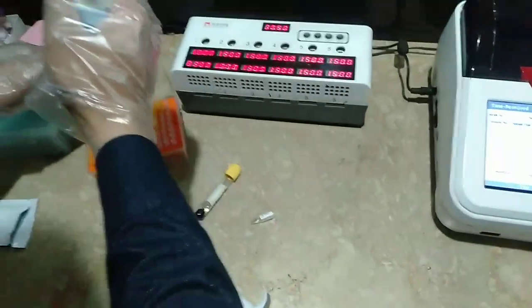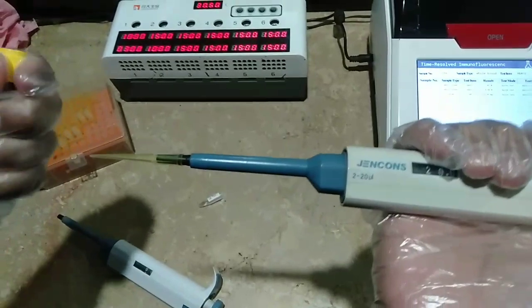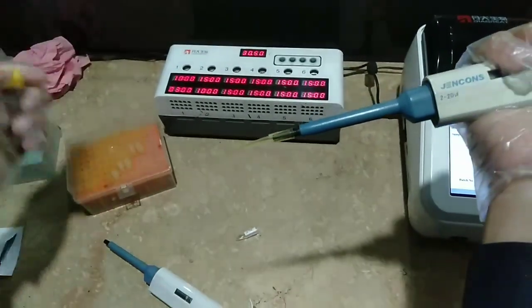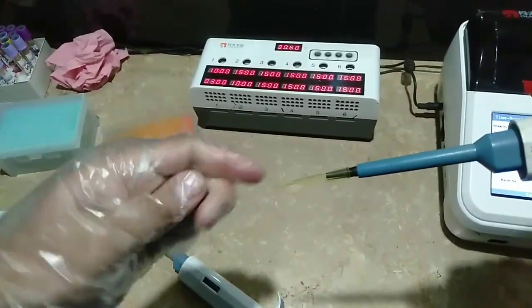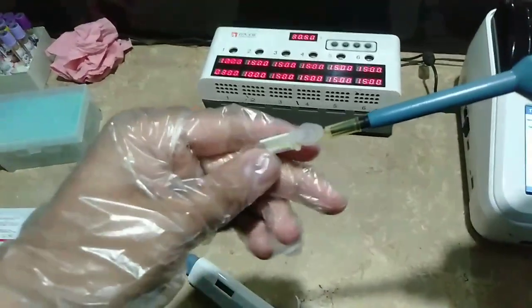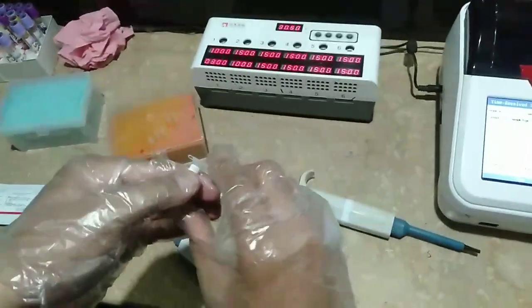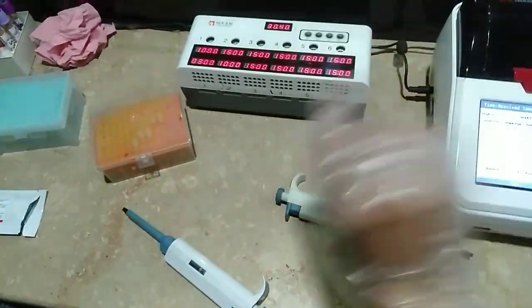We will take a clean yellow tip, as you can see, and then we will take 20 microlitre of the serum. After that, we will add this 20 microlitre of serum into the buffer. This buffer will mainly maintain the pH and also play a role in the reaction. So we will add 20 microlitre and then we will shake it — we can also mix it using a vortex, but this is a manual mixing method, as you can see.